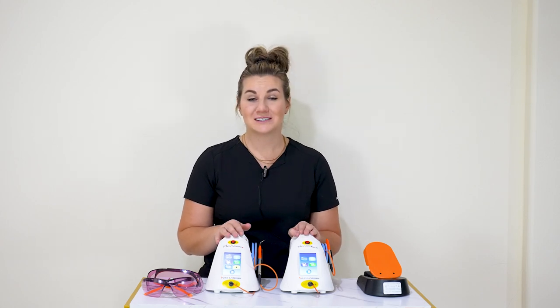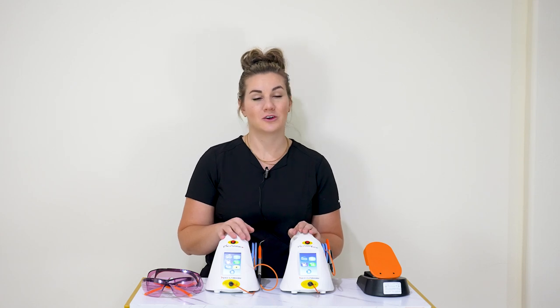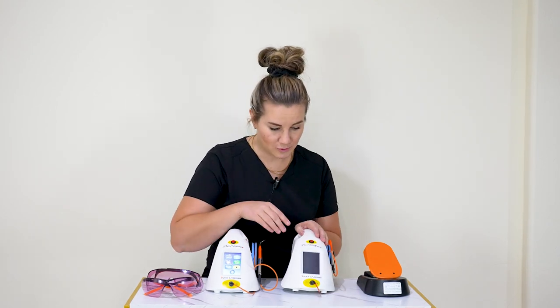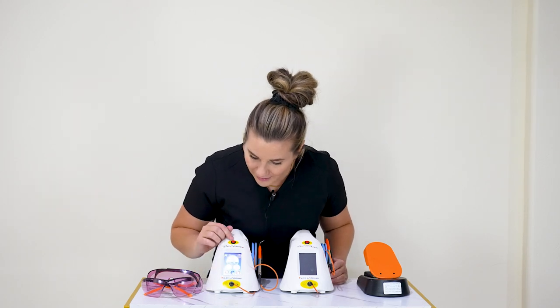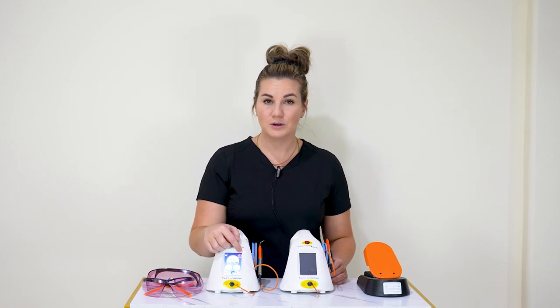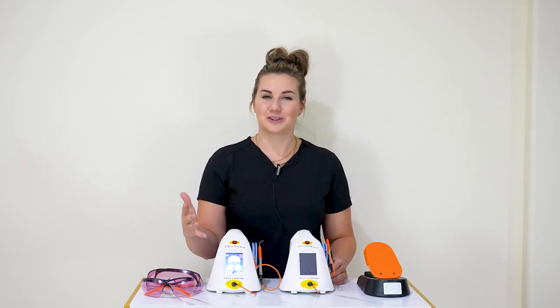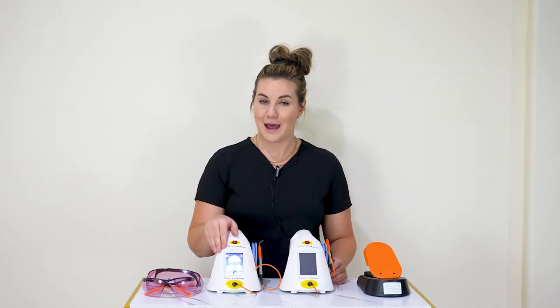I'm going to teach you how to do laser bacterial reduction and laser assisted perio — some people like to call it LAPT. Laser bacterial reduction is done in this purple setting, and it's going to be in the one with the five-second timer. If you forget which timer to use, just look at the icon — it looks like it's supragingival, and if you switch it, it looks like it's subgingival. That subgingival one is where you're going to do your LAPT.